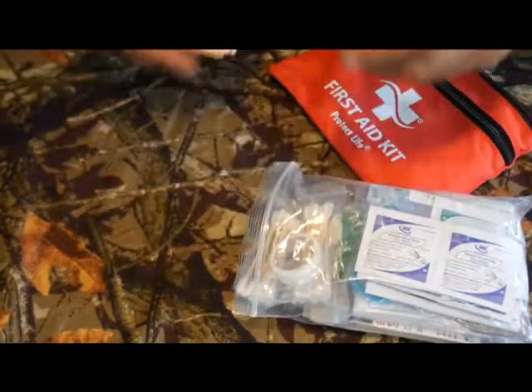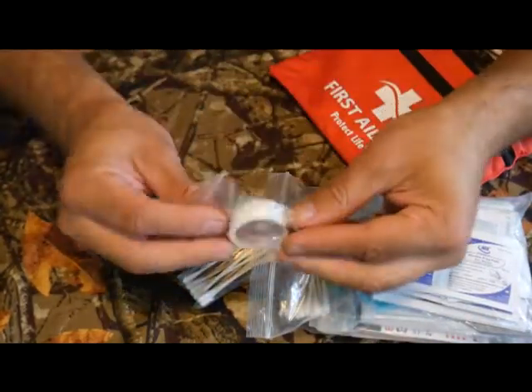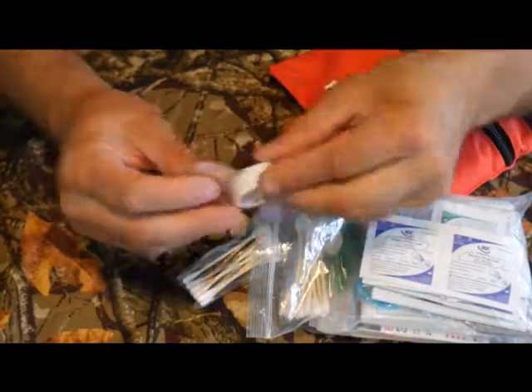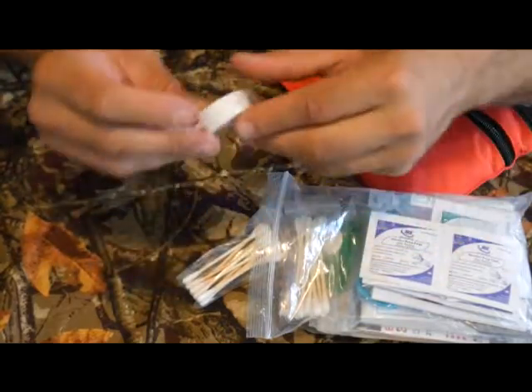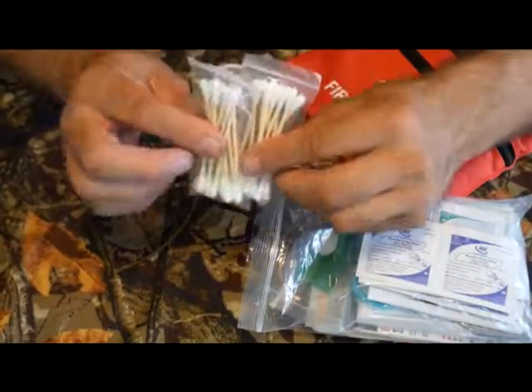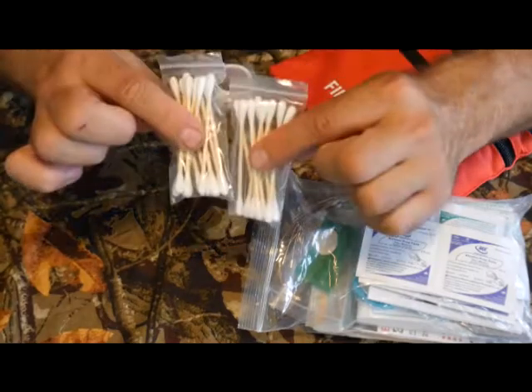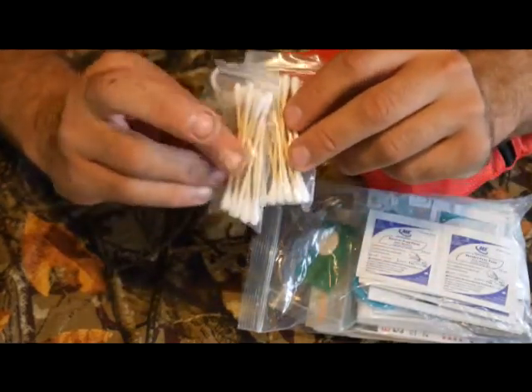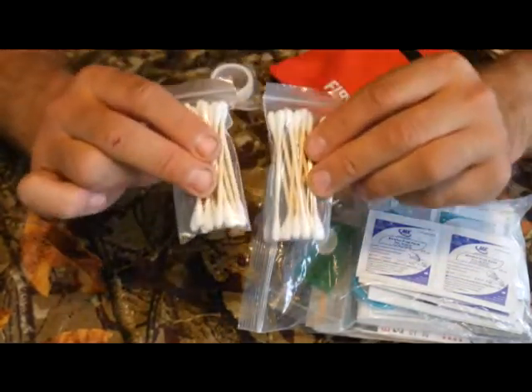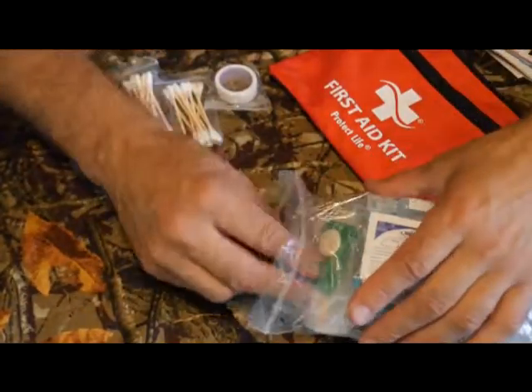There's a first aid primary care guide and a promotional insert. They've got first aid tape — I personally replace this in all my kits with duct tape, which I find more useful and stronger, but they have to include it. There are also Q-tips, which I usually don't find in off-the-shelf first aid kits. These are the good Q-tips with a wood center instead of plastic or cardboard — a plus. I always add these to clean wounds, and they can also be fire starters.